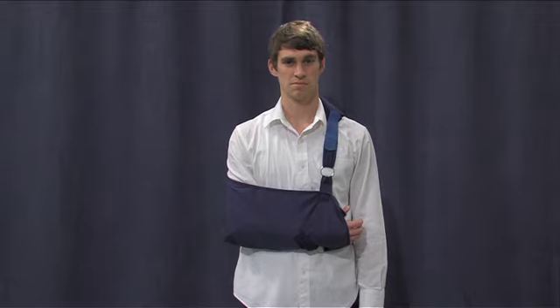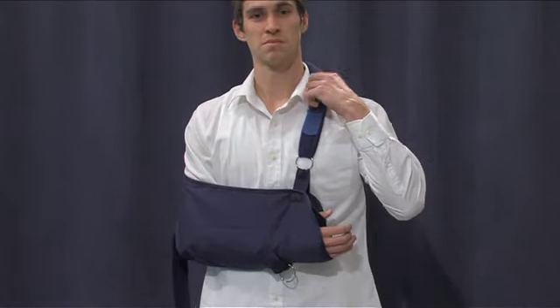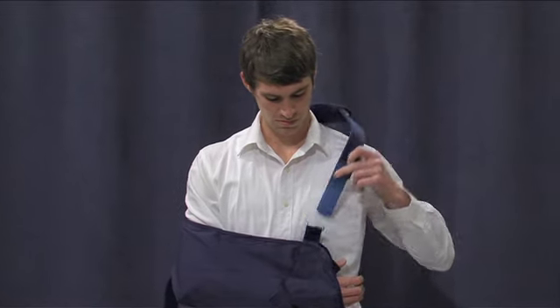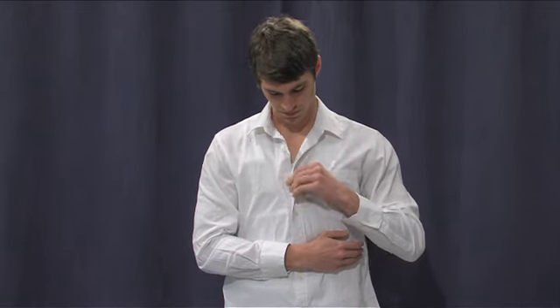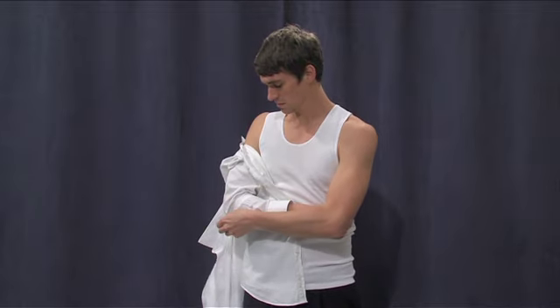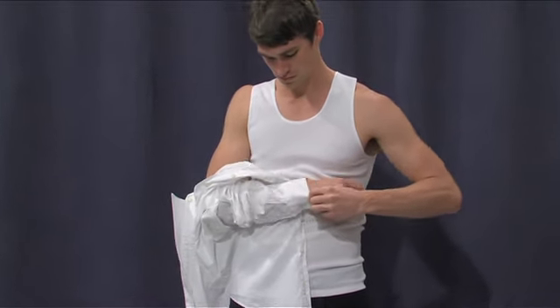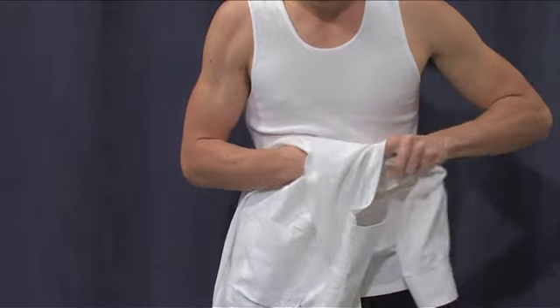In order to undress you will need to remove the sling first. Undo the waist strap, then undo the shoulder strap and slide the sleeve of the sling off your arm. Keep your arm touching the side of your body and do not lift your arm up in the air. Button up shirts or zipper front garments are the easiest to apply and remove, but t-shirts and jumpers can be used if they are quite loose. The operated arm has the shirt applied to it first and removed from it last. Undo the buttons or zipper and remove your good hand from the shirt. If you are wearing a t-shirt, the head part of the shirt comes out next, and finally thread the shirt over the operated arm without moving the arm.